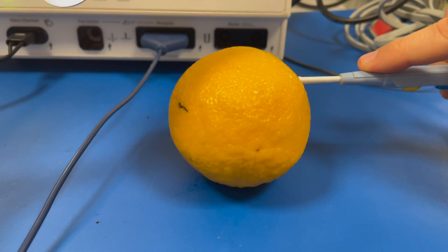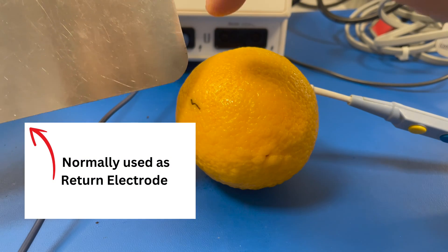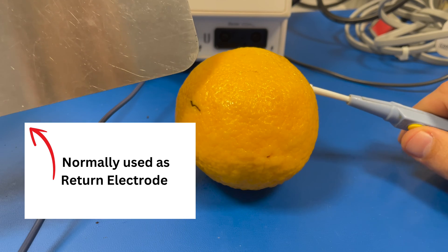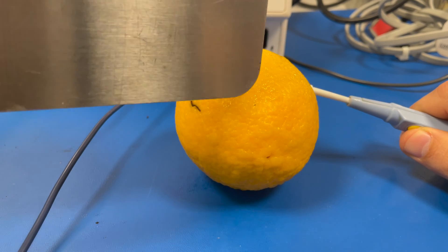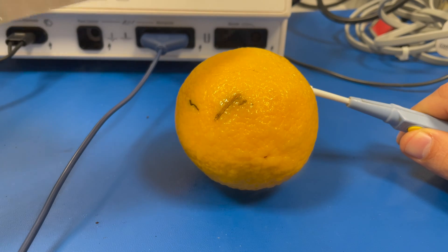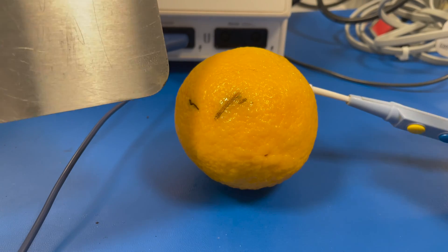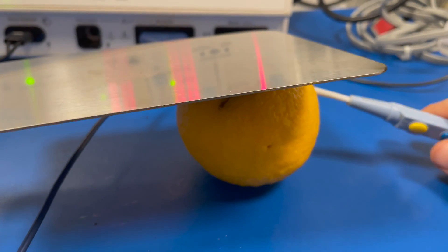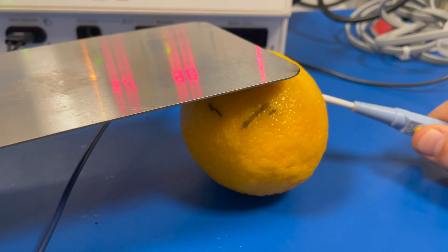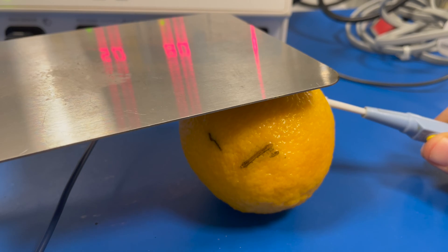In this situation, I have the electrode placed deep within this orange. What I'm going to show you is that by using this plate and having a high current density with the plate, I can also make a cut into the orange. Of course, I have to activate the pencil to do it. So there you can see I'm concentrating the current using a very small contact area of the plate and I get that high current density. Obviously, if I use a large contact area like this and hit cut, nothing happens because I have that larger contact area.